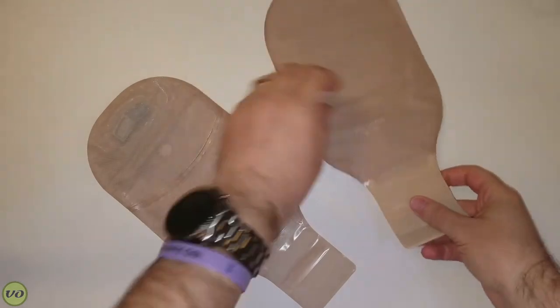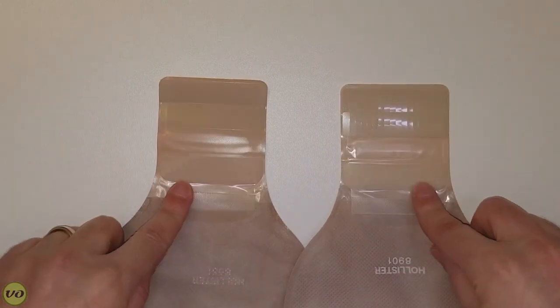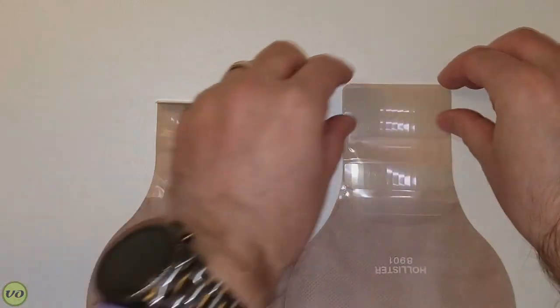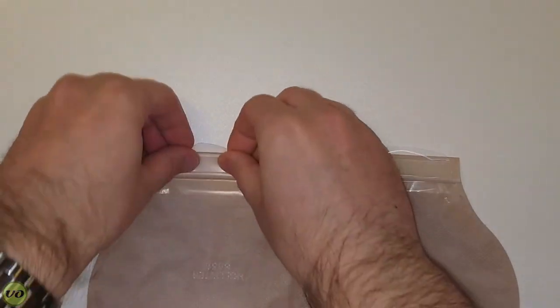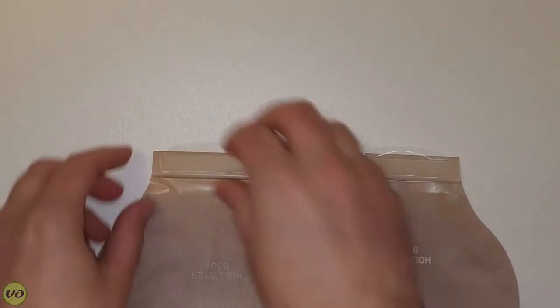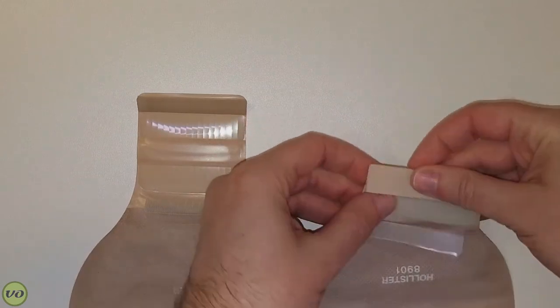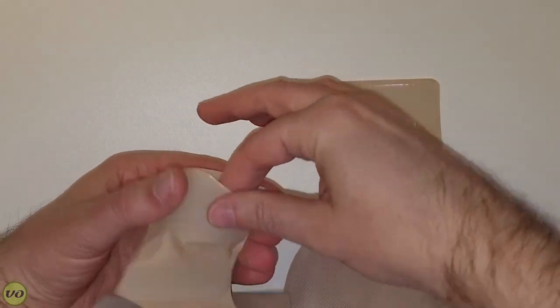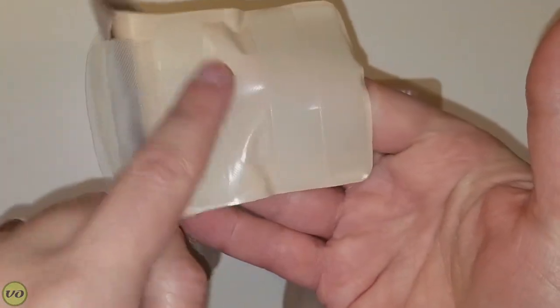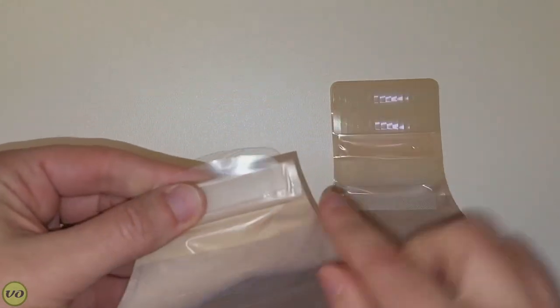Just to talk about the opaqueness of this pouch — comparing it to the standard Premiere product, both outlets look very similar and function the same way: you roll it back and snap it in place. That's pretty standard for Hollister and it works really well. One thing I'll note is that on the other Premiere product, the outlet is also opaque, so no matter what — even if it's rolled up — you're not going to see your output through it. That is not the case with this newer one-piece.